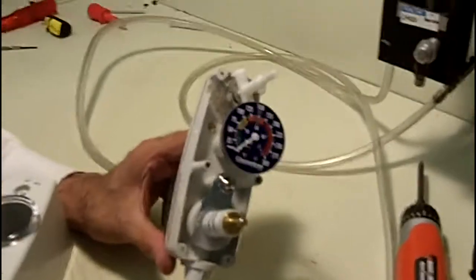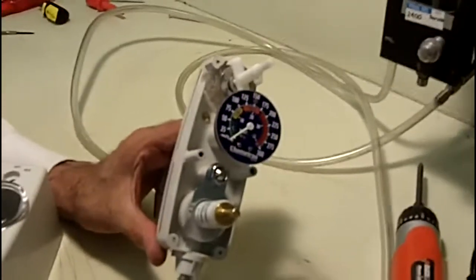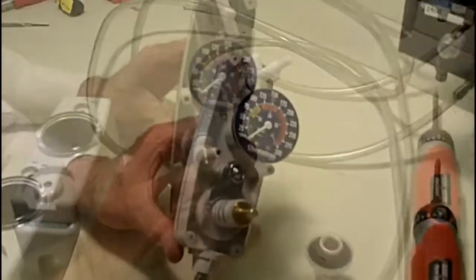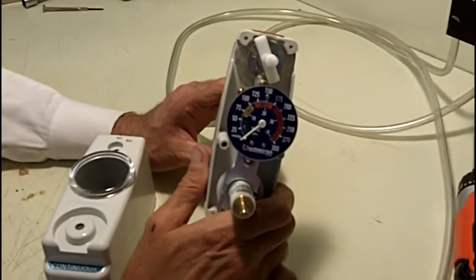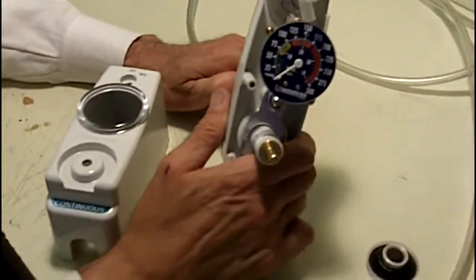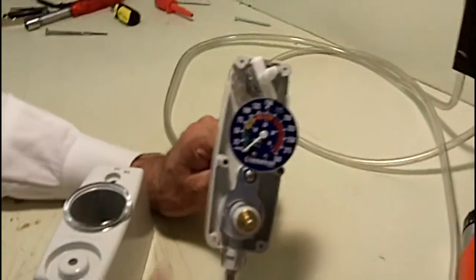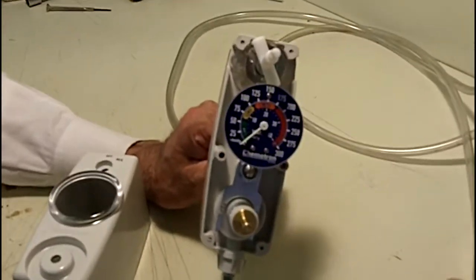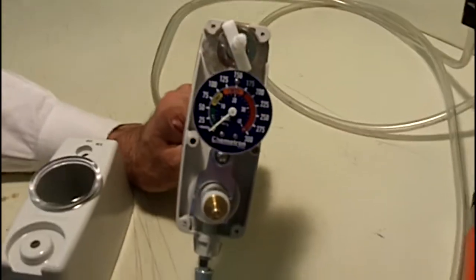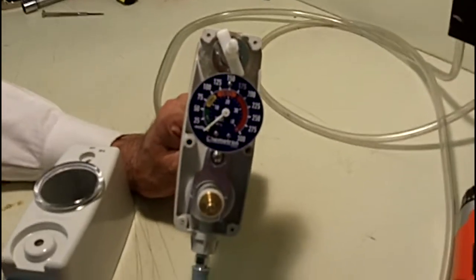And again, we're talking about after years of continuous use and probably improper maintenance as well. This is a suction regulator in which we've modified it to simulate a regulator that has a compromised regulation mechanism or one in which the regulator's gone pretty far out of calibration.